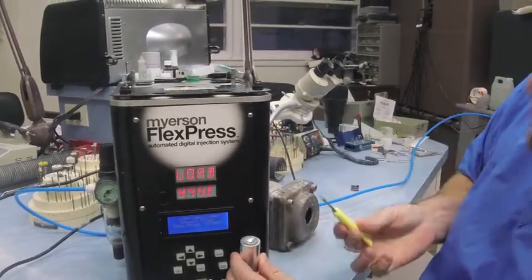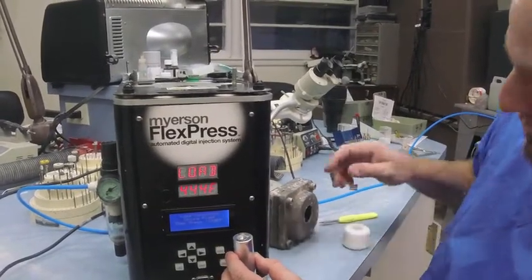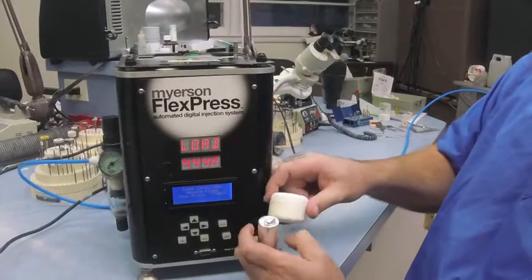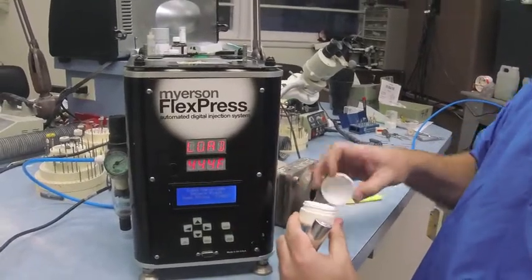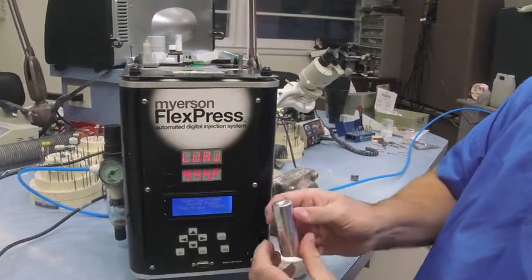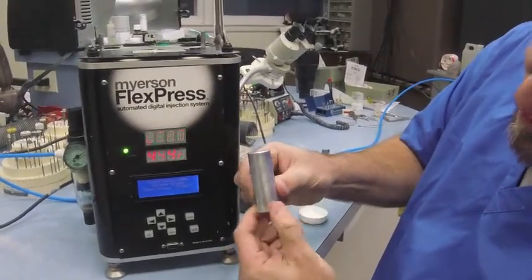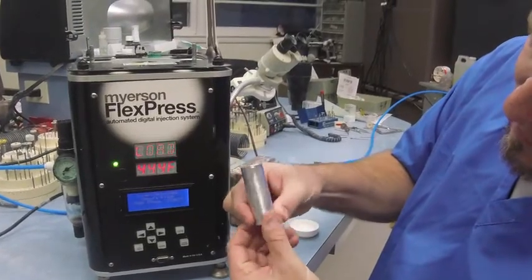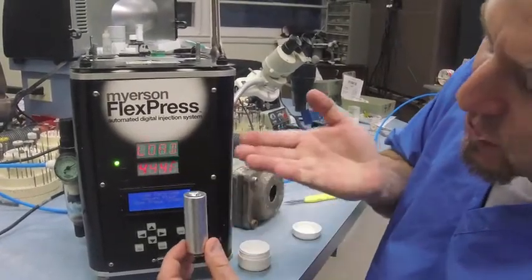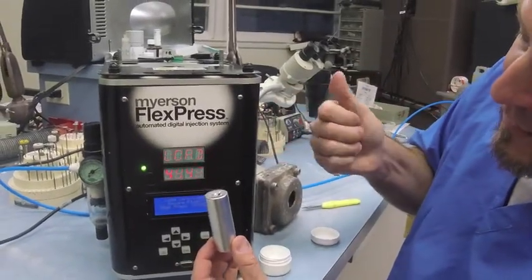This machine injects vertically, so the material is just going to melt once it goes into the machine — it's just going to settle down. You're going to have a jar of tube lubricant. It looks kind of like a Vaseline, but it's not — it's a high heat silicone. Just need a nice thin coat so the outer shell is slippery. This is so when it injects and crushes that tube, it slides up the walls of the flask easily.